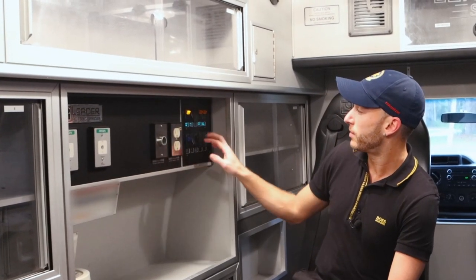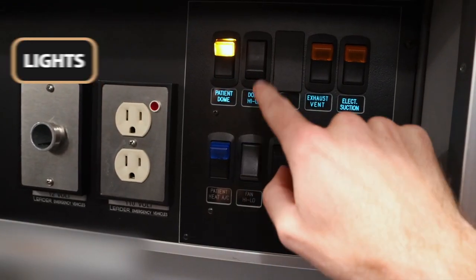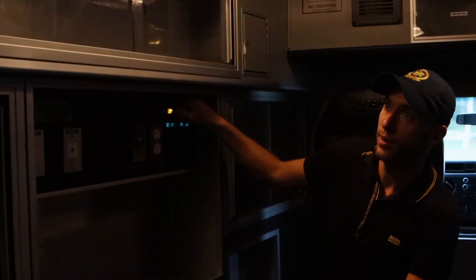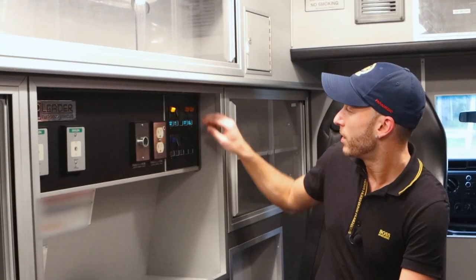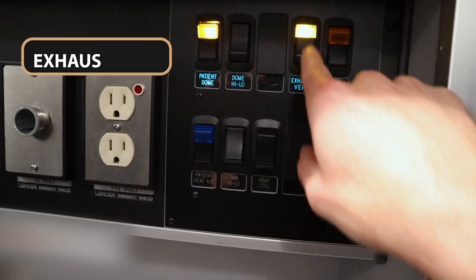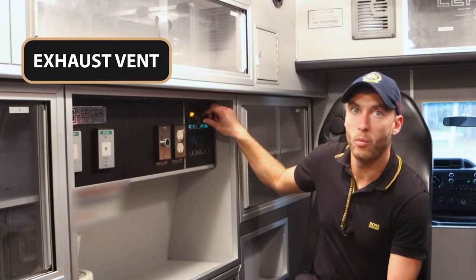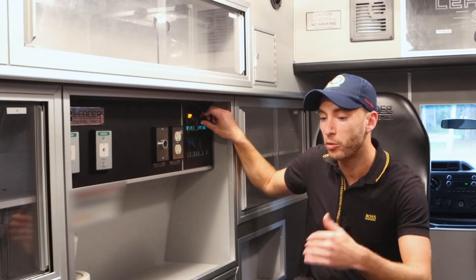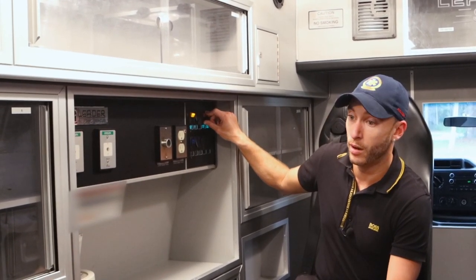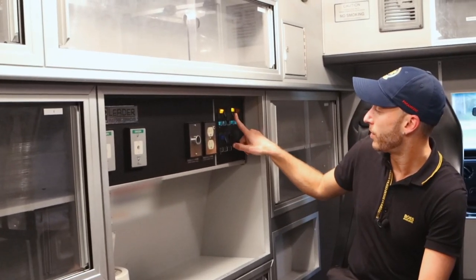And we have all our lights. So here's our patient dome — we can turn the lights on, turn them off. You can see that. We can turn how high they are, high to low. Very important. The exhaust vent — so if we have a patient that is a respiratory patient, for example, or for other reasons, we would use the exhaust vent.